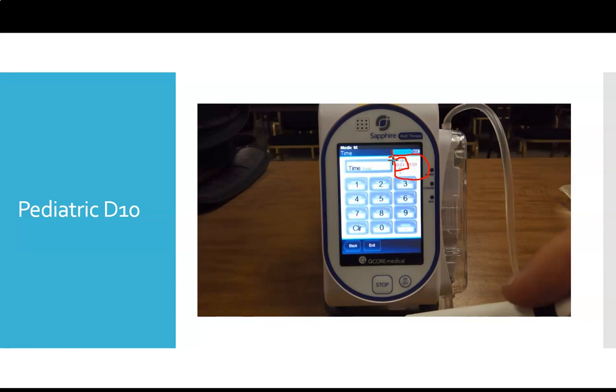The pump's not going to let you do that because it can only give the fluid in a certain amount of time. If you're trying to tell it to infuse faster than the pump is able to, it won't accept that. And the way the pump doesn't accept something is a little button that should be right here that says next, it just takes it away. It makes it disappear. So always remember that the fastest you can give a certain amount of fluid is the number in the top right hand corner to the left.